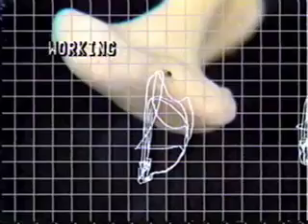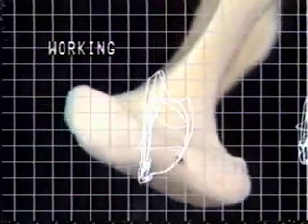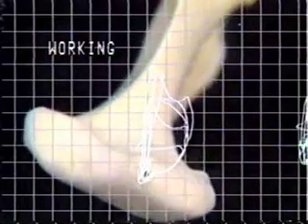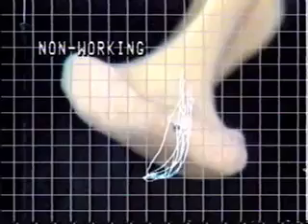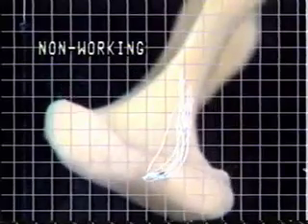In another display of horizontal plane movement, some selections from a previously recorded working side condyle chewing plot are superimposed over the top of the condyle of a mandible mounted in the replicator. The mandible is being moved by this subject's chewing data. This is the non-working movement, meaning the subject is now chewing on the opposite side.